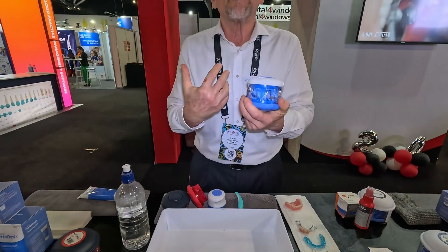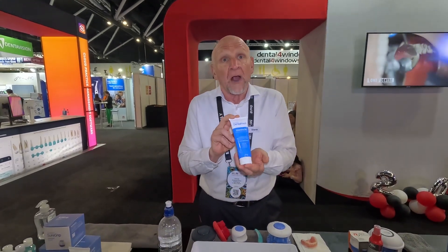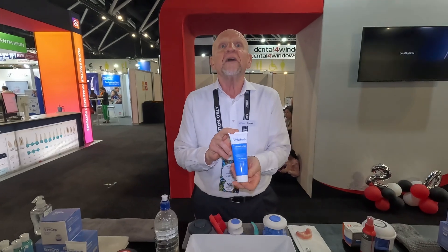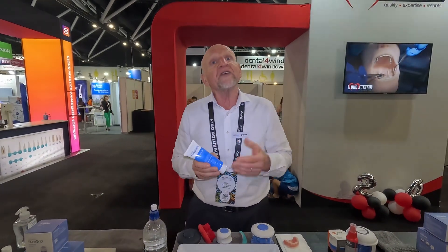Let's talk about soap-based cleansing, which is the second element. We've custom formulated a soap-based formula specific for the care of dental appliances — it's called Dental Fresh. It's a mild soap-based formula with the addition of organic peppermint oil, which is a natural antibacterial, and leaves dental appliances smelling minty fresh once clean. It has a biofilm remover, is very rich in surfactant so that it foams and rinses up quickly, and most importantly we've reduced the acidity — the pH balance — to 5.0, which is the ideal pH for dissolving calculus and plaque over time.